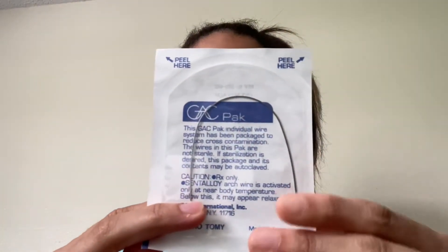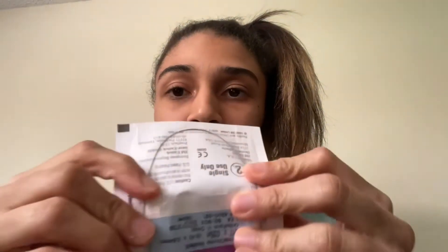These are wires. There's pre-cut wires and so many different kinds. Wires can come in spools. So many different wires — so many different types. As you can tell, this is a round wire, very thin and flexible. And then you'll go into, for example, a stainless steel wire, which is flat and rectangular and harder to bend. The thinner wires are used in the beginning of treatment.